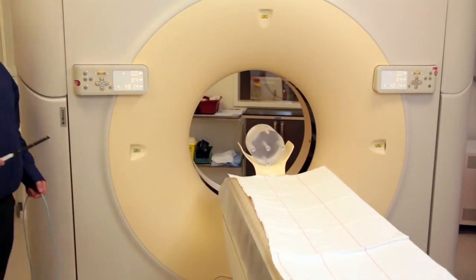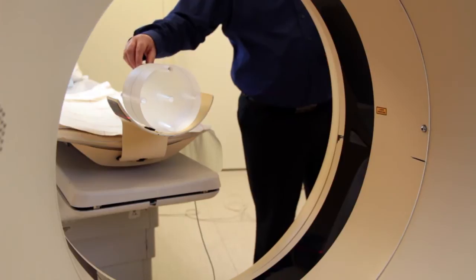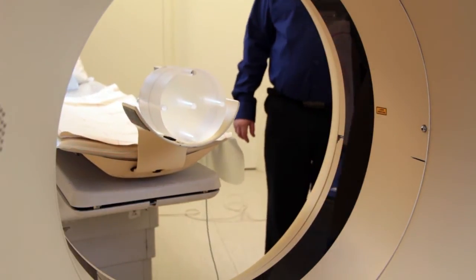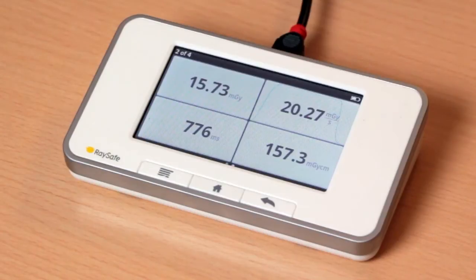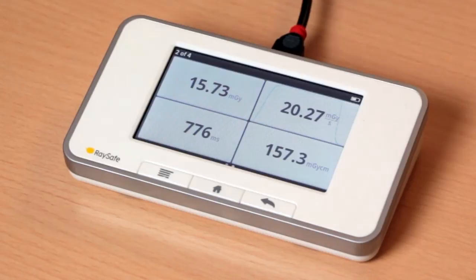Now we have made measurements free in air, and it's time to do measurements in phantom. With the waveform capability of X2, we have good help when we do this. Place the CT sensor in the peripheral hole and move the phantom into position. So now we make exposure in the phantom, and the first shot is the peripheral exposure.